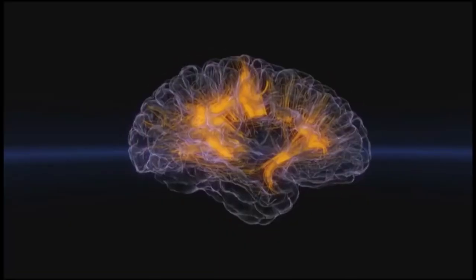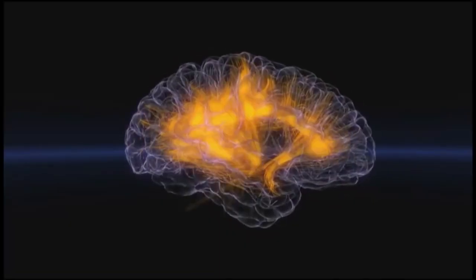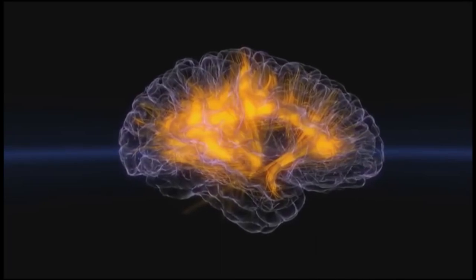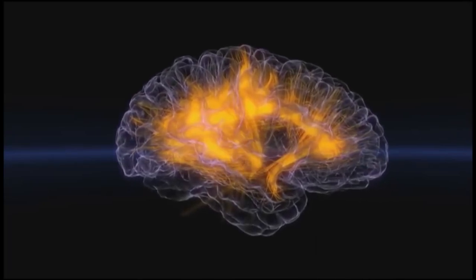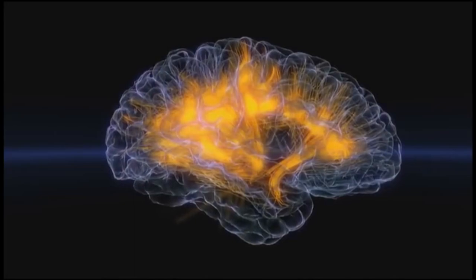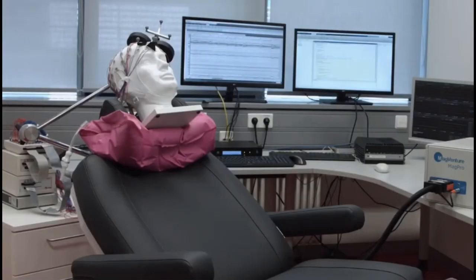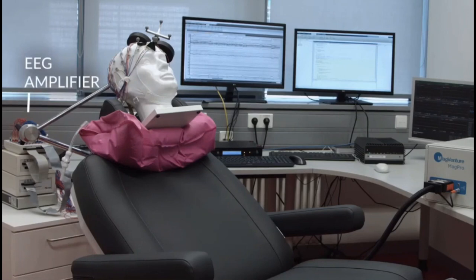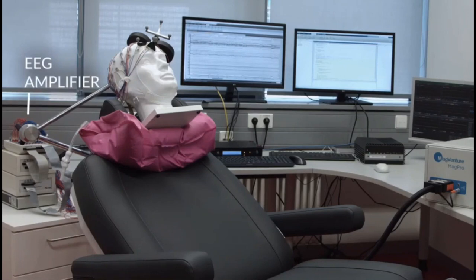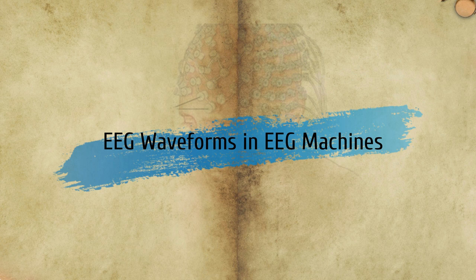Hello and welcome to the second part of the EEG series videos. In this video we will look into the types of waveforms recorded in an EEG machine and components of EEG machines. I recommend if you've not seen the first part of this series, please first check that out and then resume to this video. Let's begin with types of EEG waveforms and EEG machines.